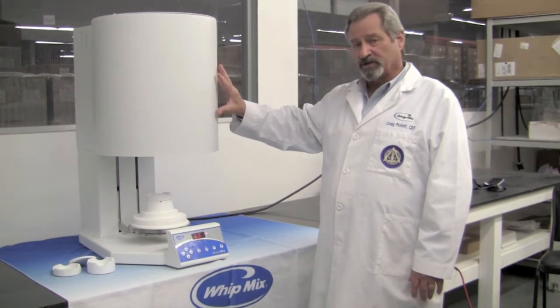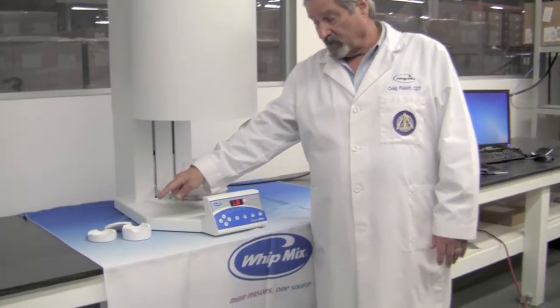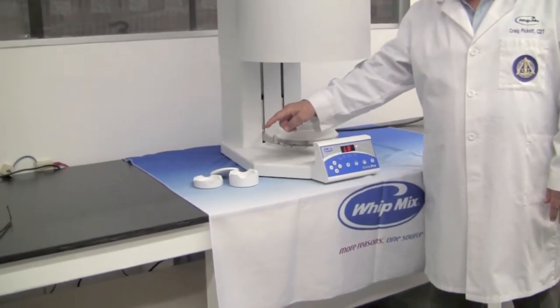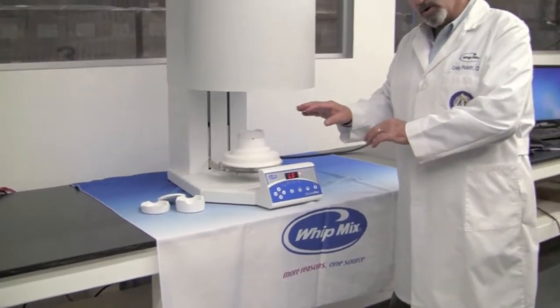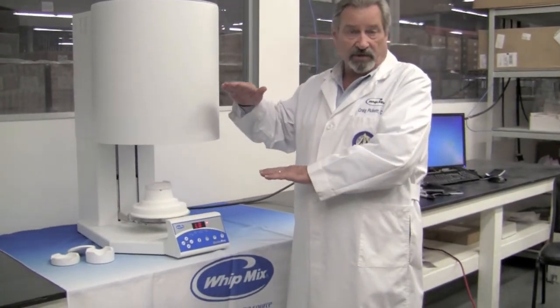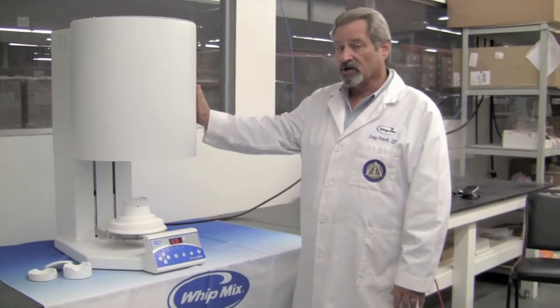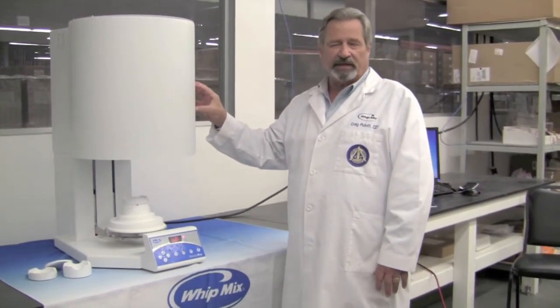It is a high payload machine, which simply means that through the use of a large and a small tray and lid, you can combine those products on your table to get into the machine as many as 90 units to sinter, so you can see you have lots of capability there.